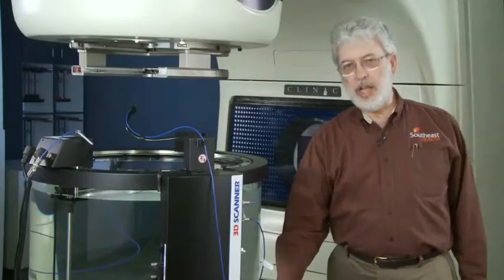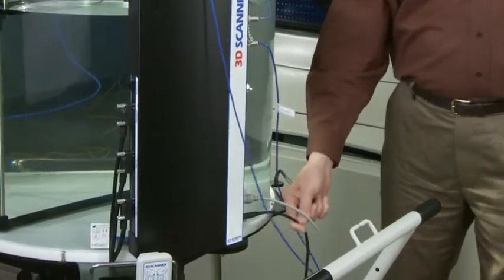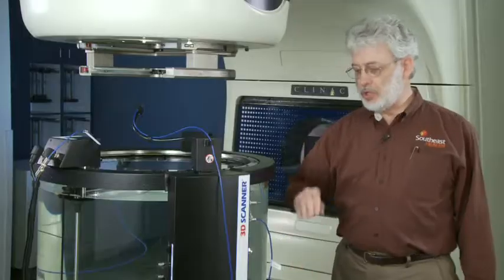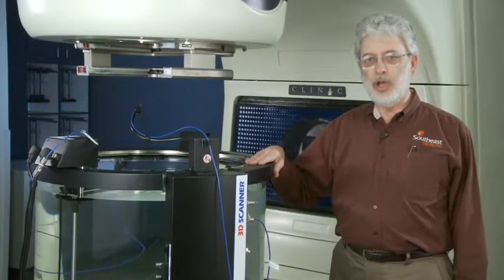There's one data cable. It's the same cable that I have in my Linac vault for Map Check and Arc Check. One power cable that plugs into the wall. Once the tank is filled up then you're ready to run auto setup and start scanning.